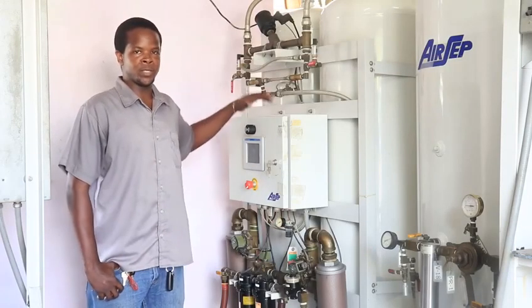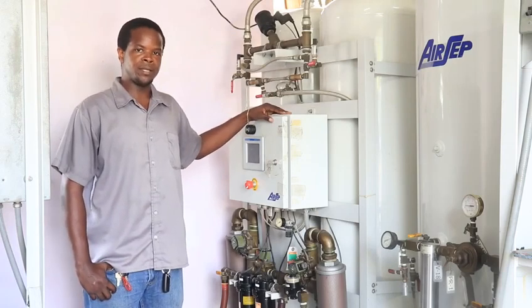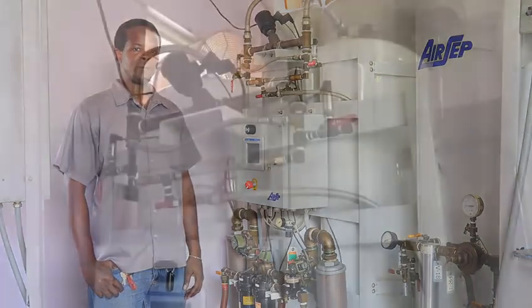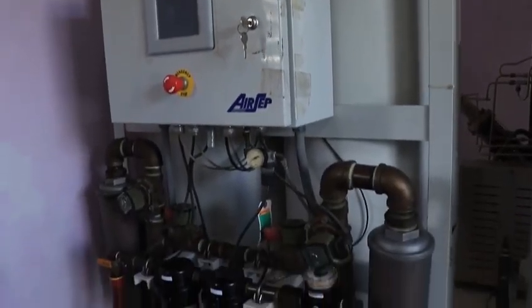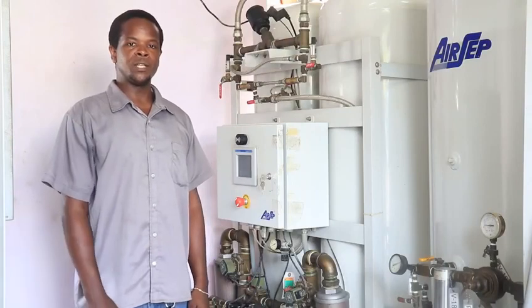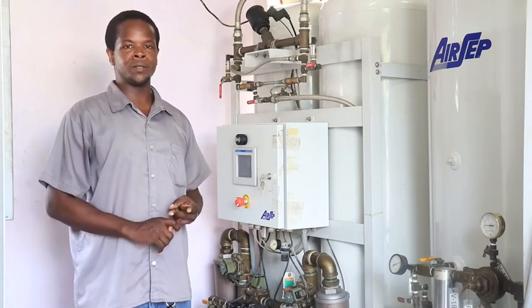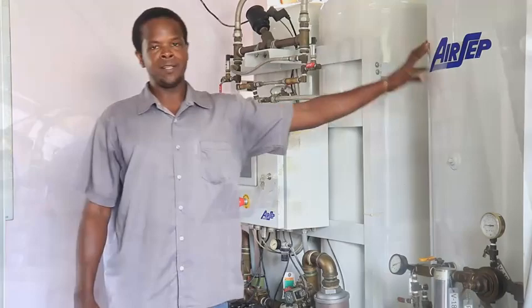Next is the oxygen concentrator. The oxygen concentrator takes the dry compressed air and passes it through a series of filters in order to remove excess water and oil, following to the filtration bed. Filtration beds are made of a special material called zeolites, which are used to trap different gases such as carbon dioxide, nitrogen, argon, etc., which allow oxygen to pass through and be stored in the receiver tank.